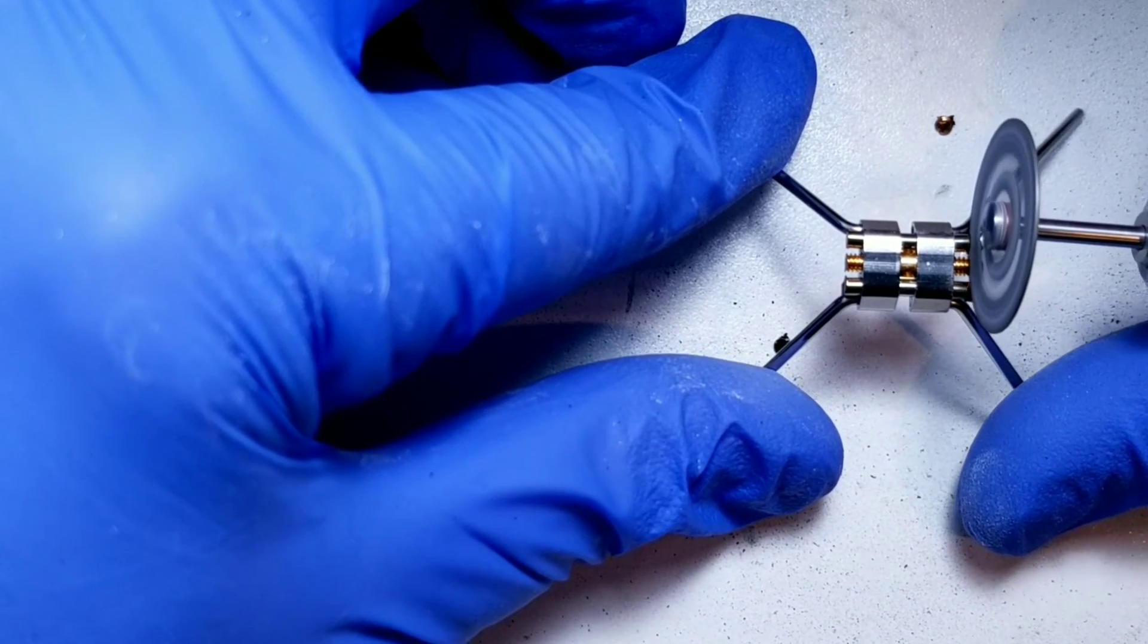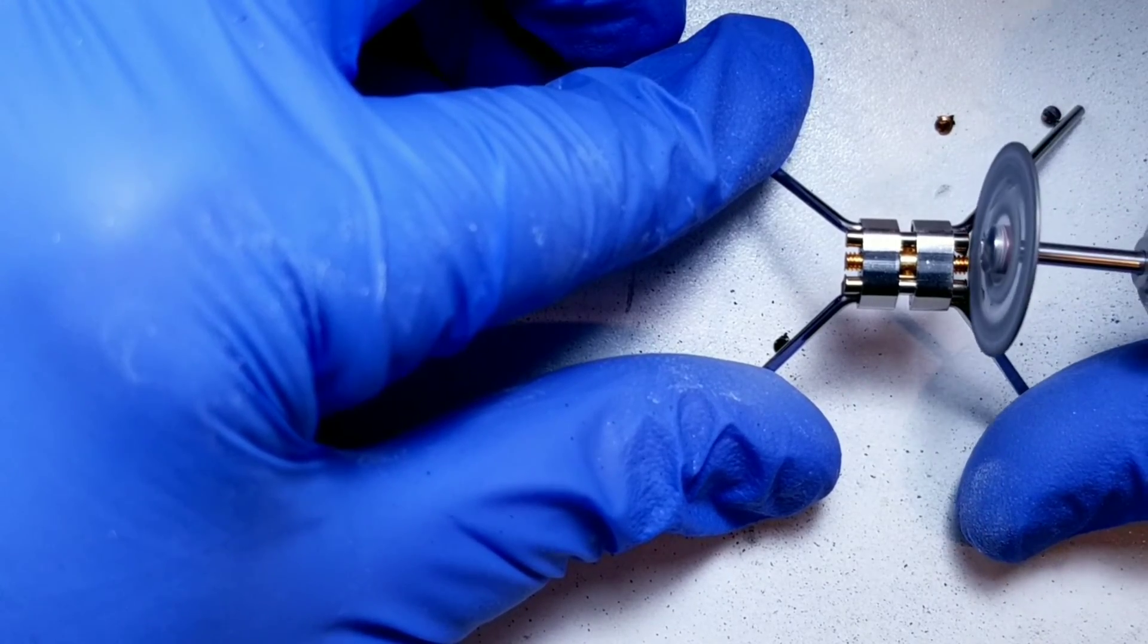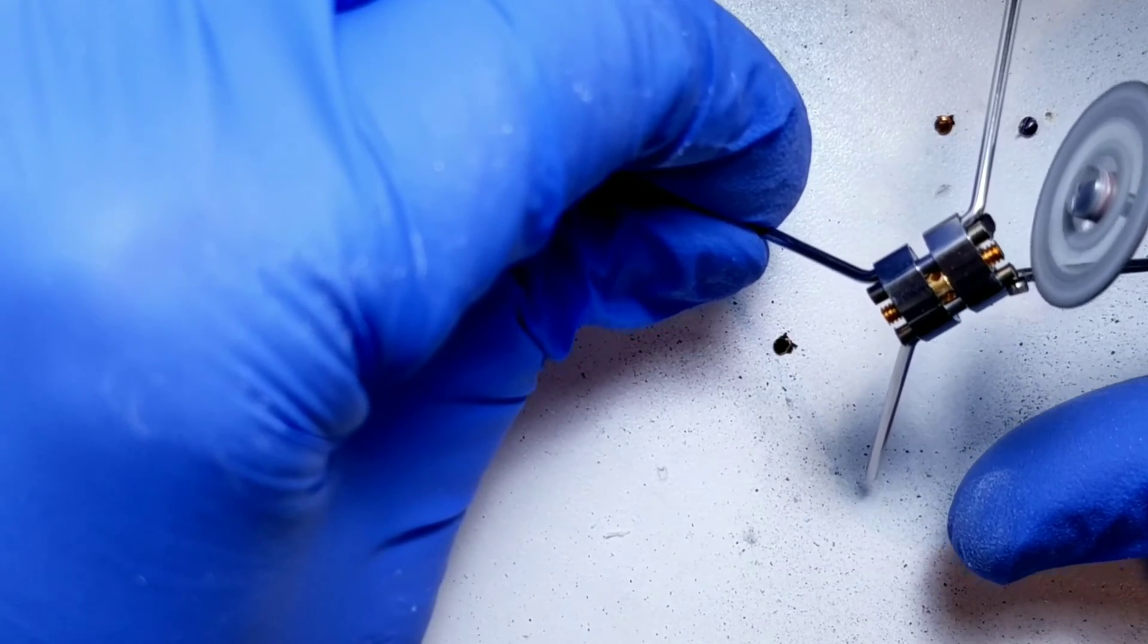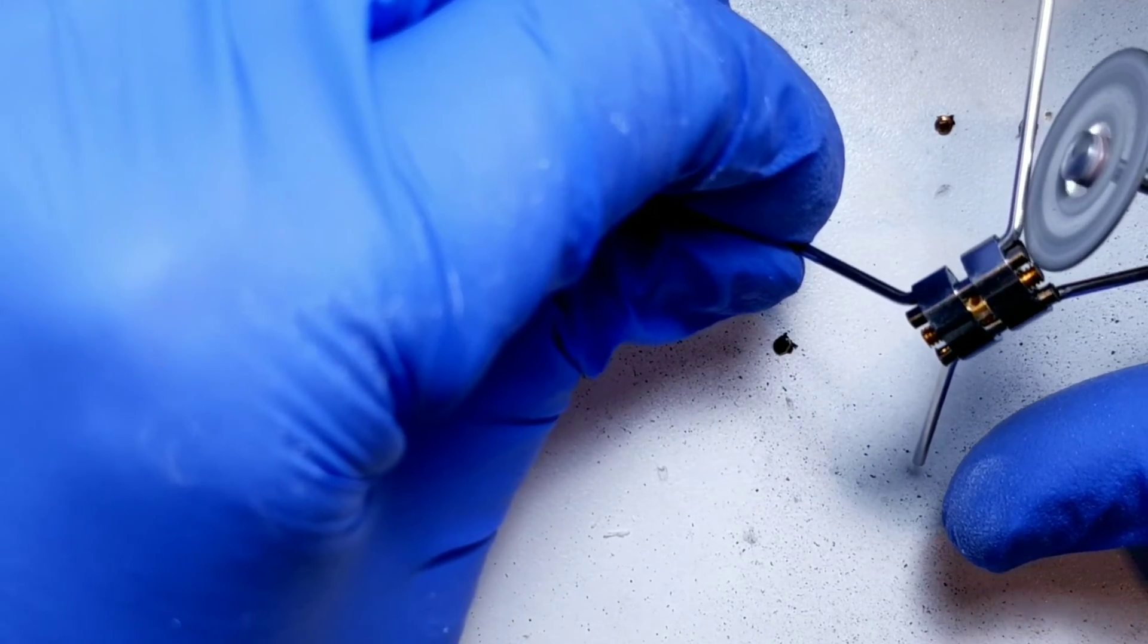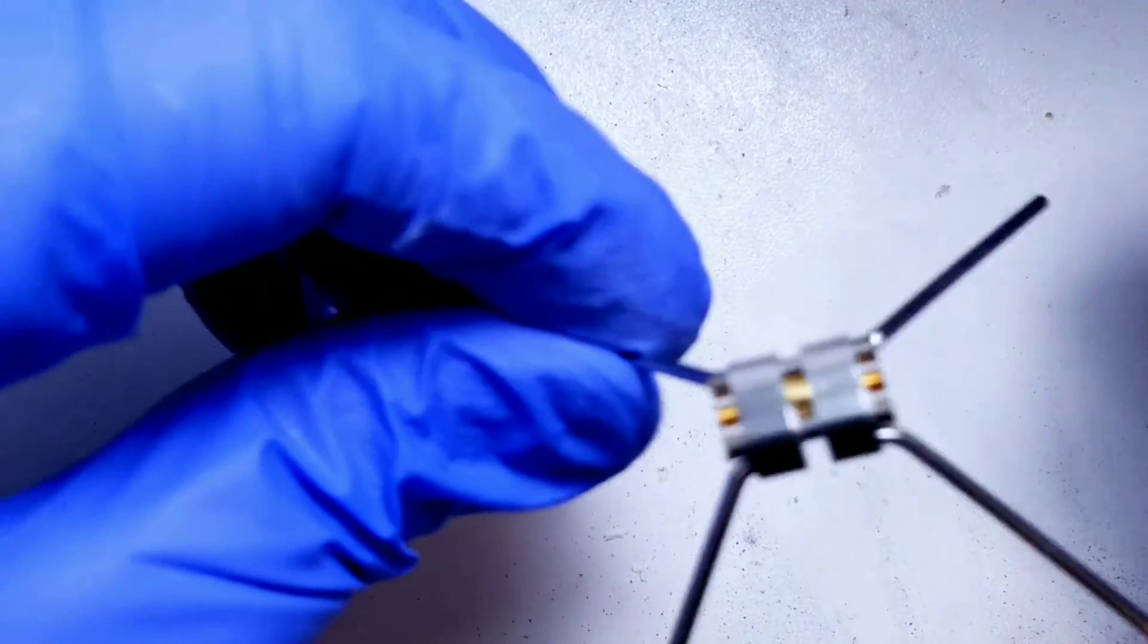Now while I'm doing this, the actual housing of the screw becomes very hot, obviously. But the way these screws are designed, they absorb so much heat in the housing that it won't actually distort the expander. It won't cause any problems to it.